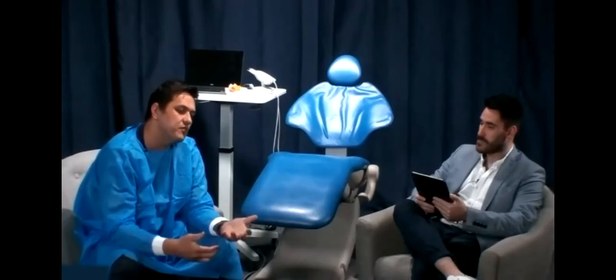I've got another one here. What is harder to scan, an occlusion with a single tooth or a full over full denture? Definitely a single tooth is more difficult. A full over full, there's a few different ways to do it. Do you want me to have a crack at that? So let's say, for example, the week before you've scanned your patient's edentulous arch, upper and lower.